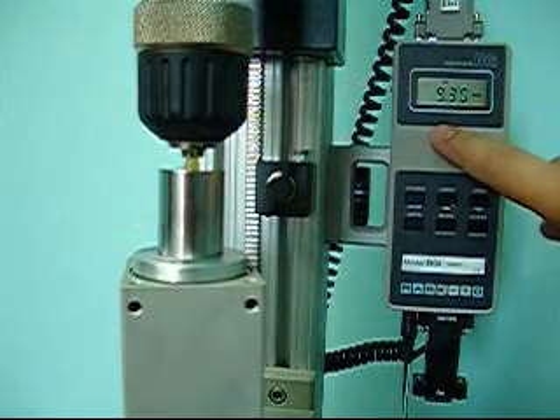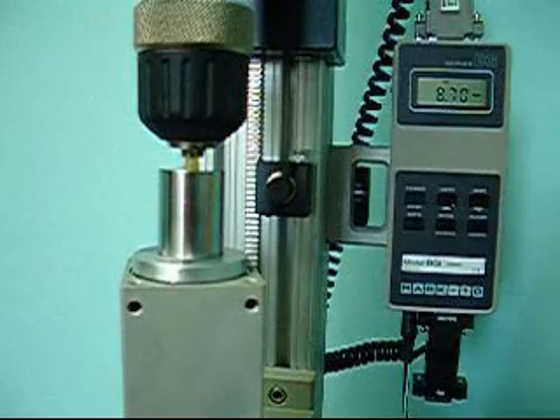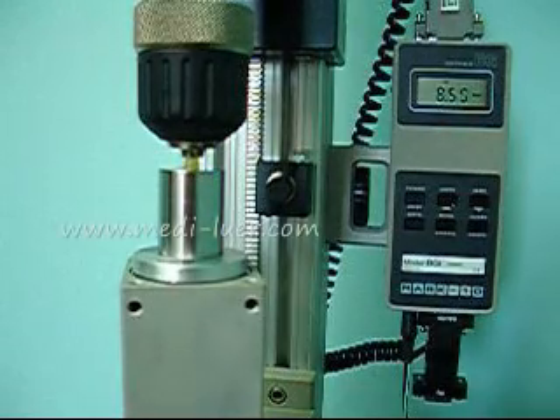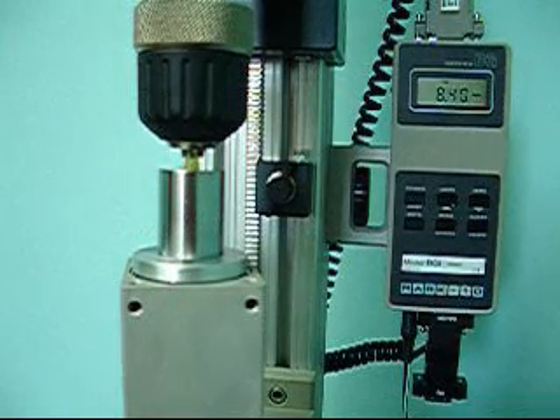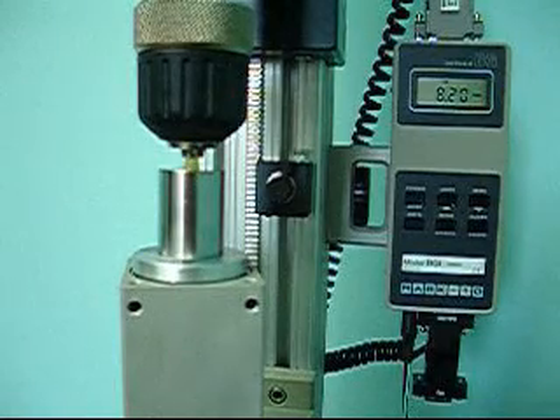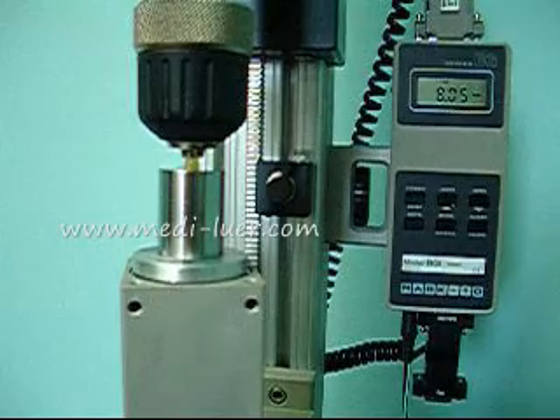You may want to set the newton centimeters of torque at 11.5 so that it doesn't go over 12. That's a call that you can make. The standard requires 0.12 as a maximum. Once it got to that point, it shut off. It's done.